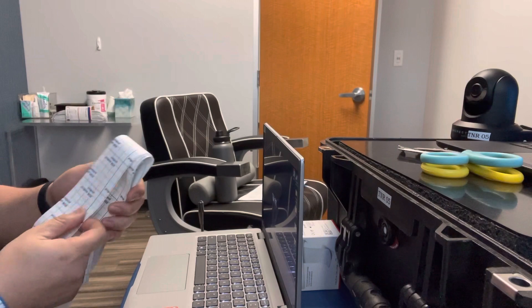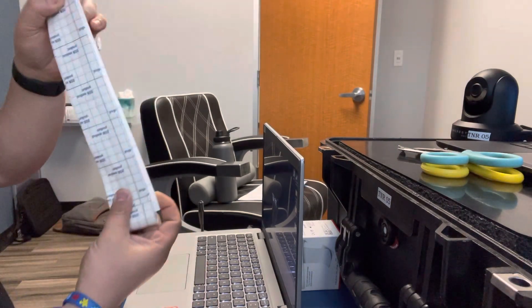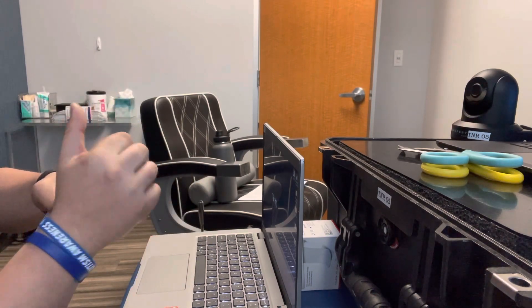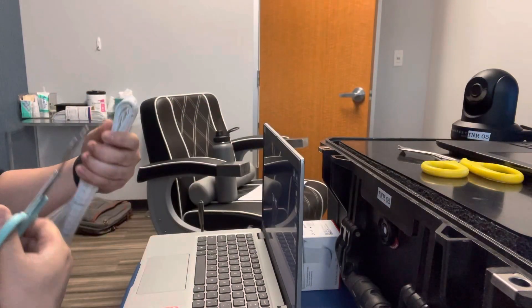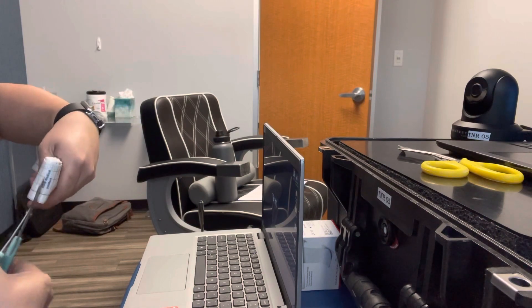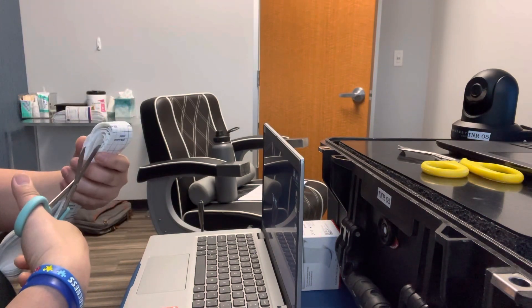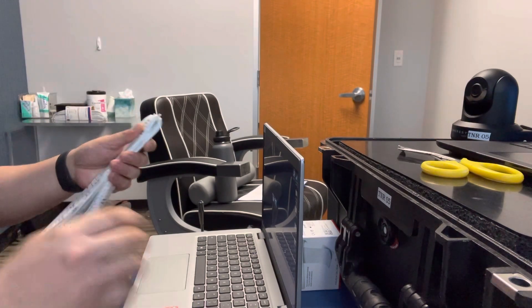See? There you go. Now we get to the end. You've got this nice length that's uniform. And you want to find the sharpest scissor that you could get, so you don't want to struggle with it. Go like this — bam, one side. And then the other side.